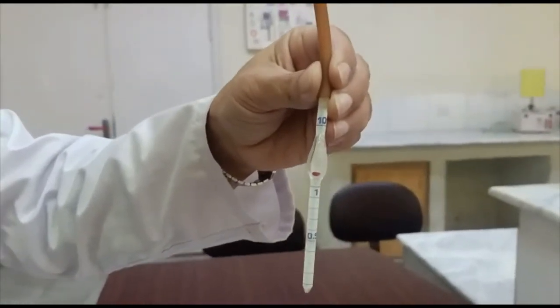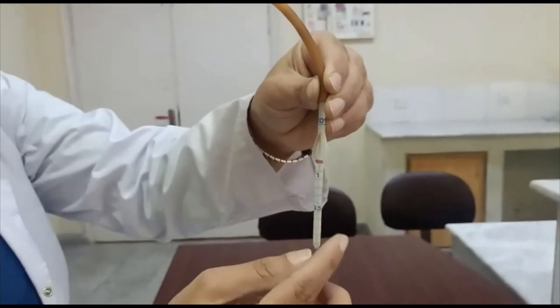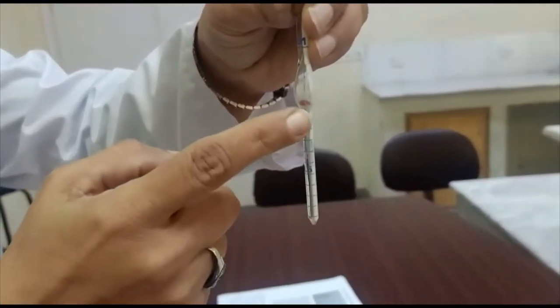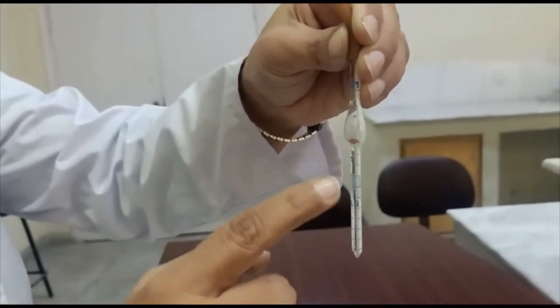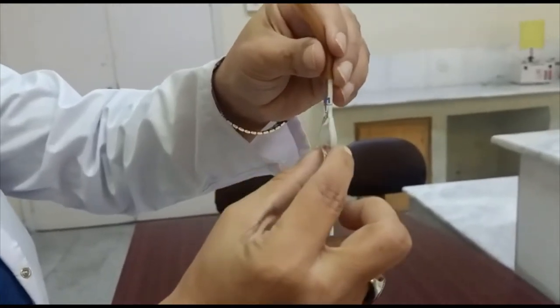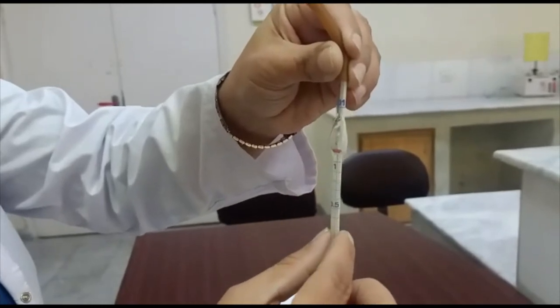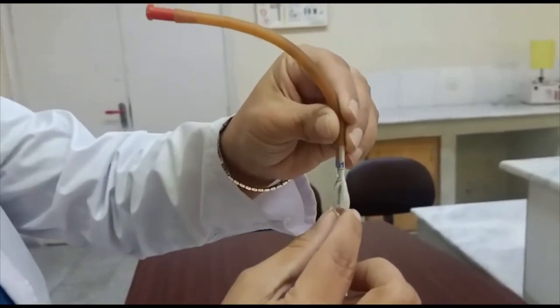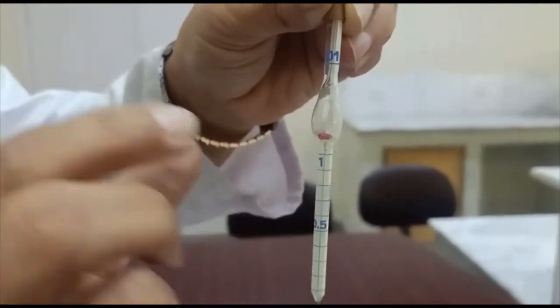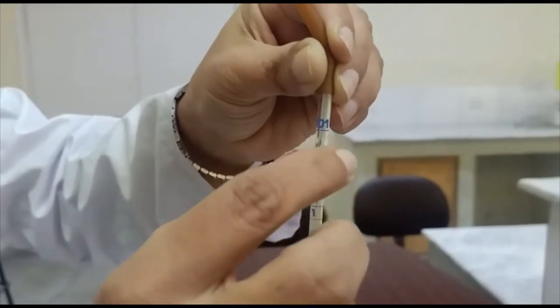First, the RBC pipette. It consists of a glass stem with a capillary tube marked from 0.5 to 1. From the tip of the pipette to mark 1, there are 10 equal divisions. This glass stem widens into a bulb containing a red bead. The stem has a capacity of 1 part and the bulb has a capacity of 100 parts. The red bead indicates this pipette is used for red blood cell counting and has a capacity of 100 parts.